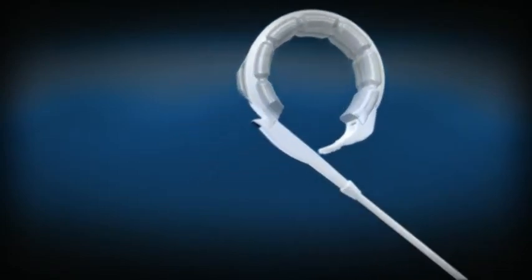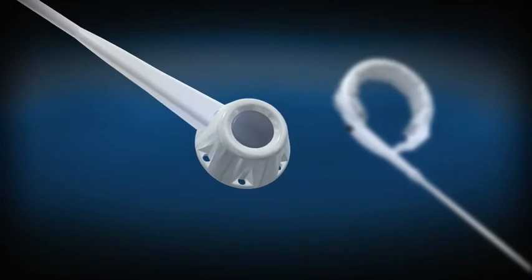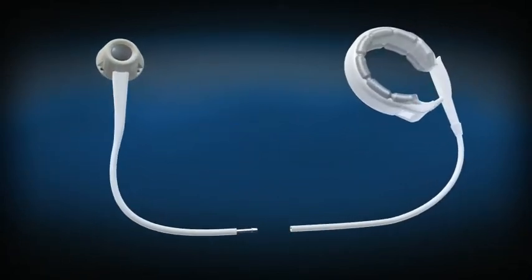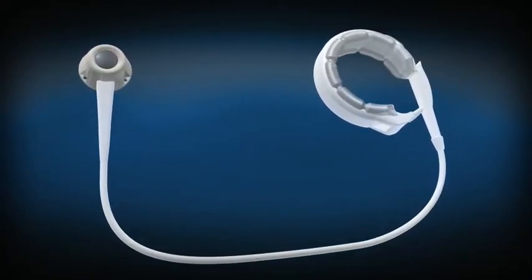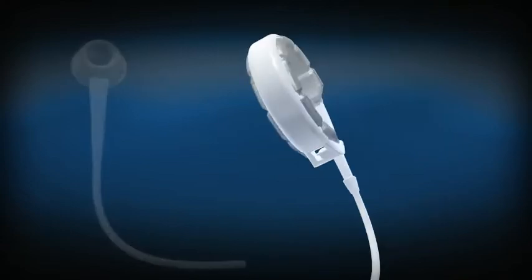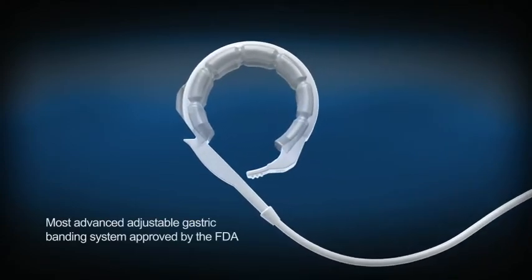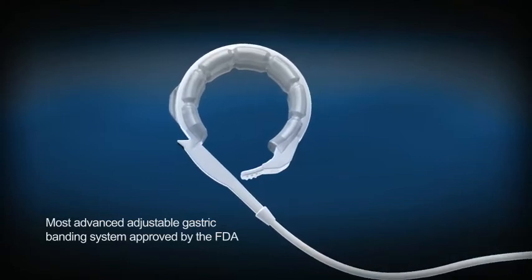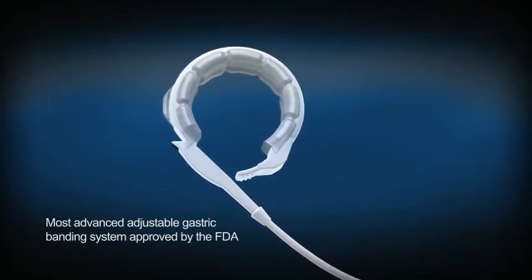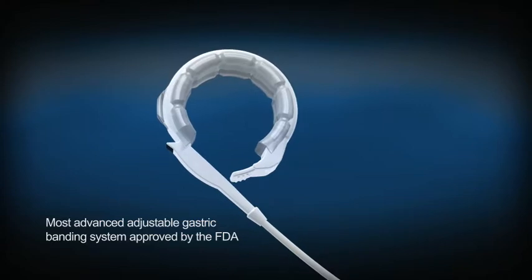The LapBand is an adjustable silicone ring that connects to an access port by thin tubing. The LapBand AP system is the third and latest generation LapBand system. Its design and performance are the result of seven years of U.S. experience as well as countless collaborations with surgeons across the country.